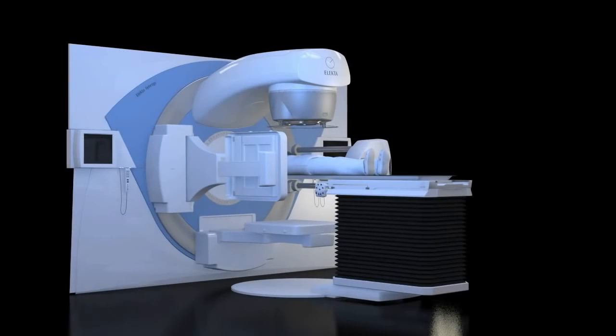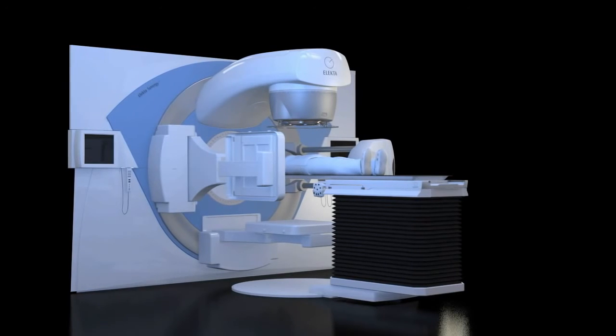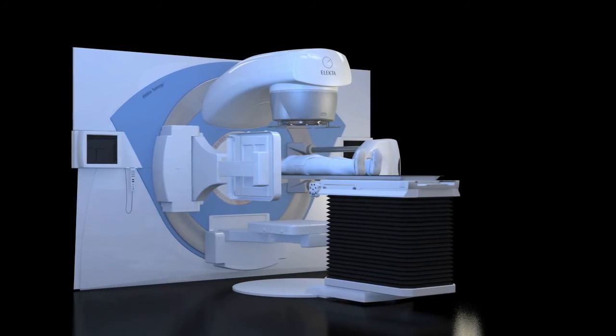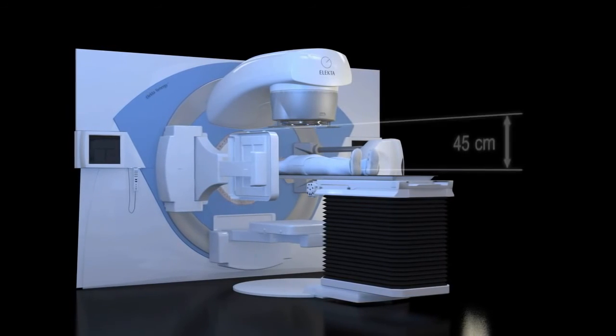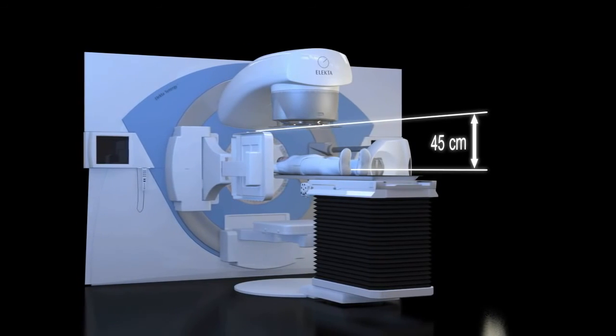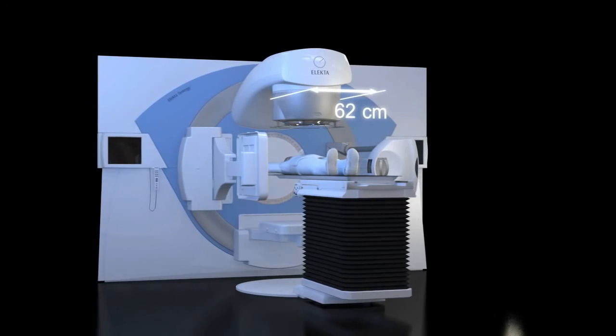Clearance. Clearance is the free space available under the LINAC for patient treatment, and it varies with different protocols and fixation devices. It is a combination of the distance between the lower surface of the radiation head and the isocenter, 45 cm, and the head diameter, 62 cm.